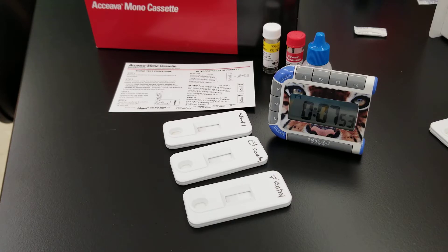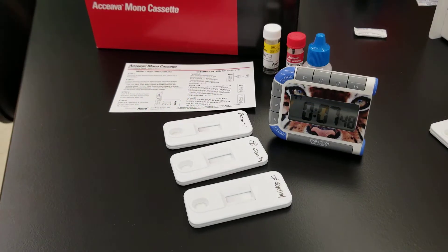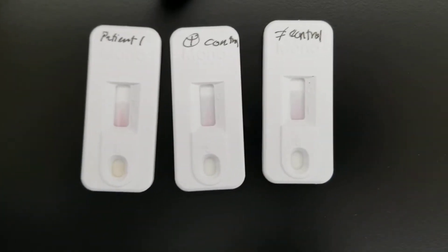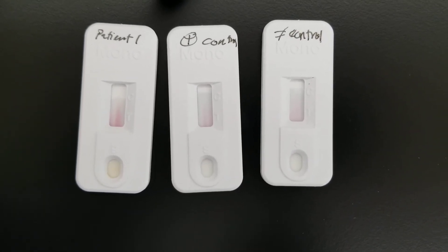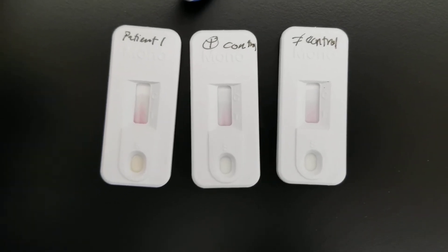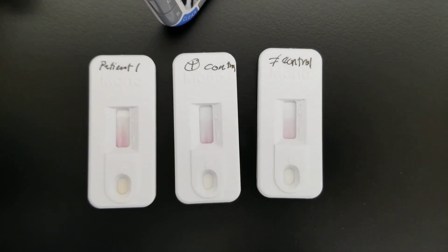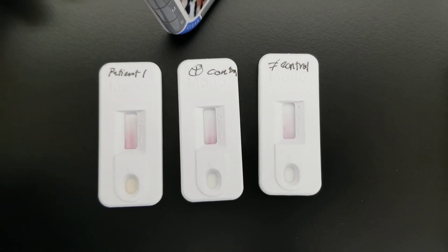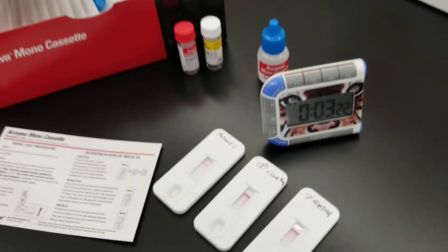We're going to go ahead and start our timer for eight minutes. This is a direct solid phase immunoassay that is using the buffer to draw up that patient or control liquid up through the cartridge. You'll see the dye going up — that's not blood, that's dye. You want to make sure they're on a flat surface so that this process doesn't get hindered.